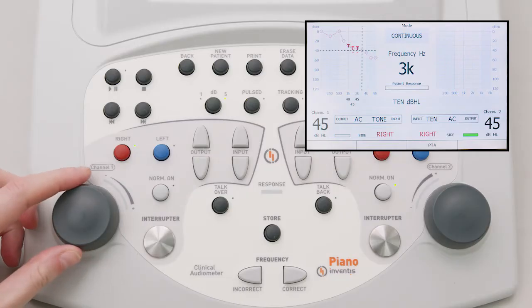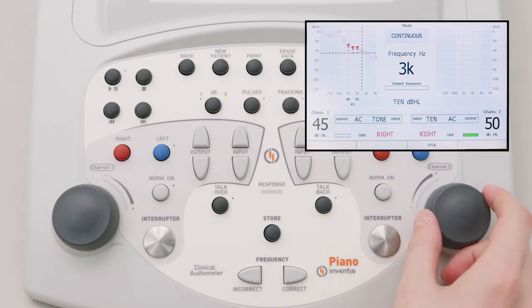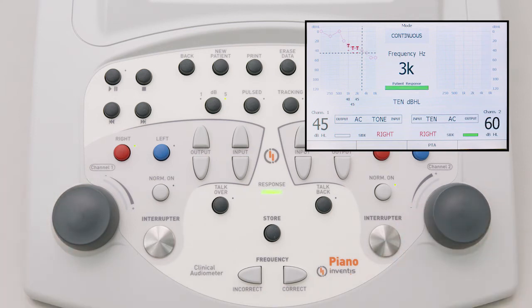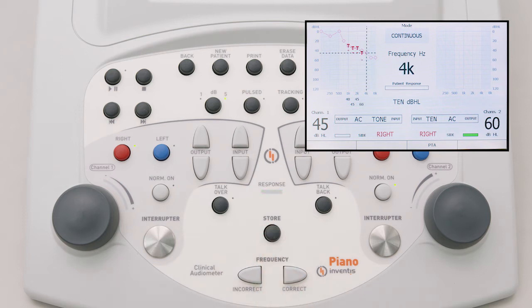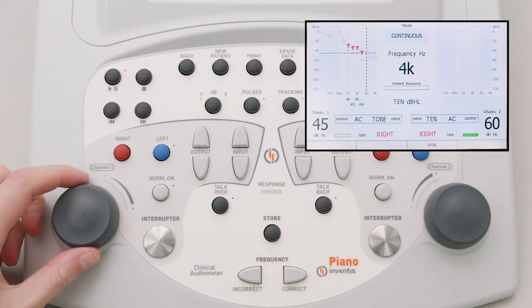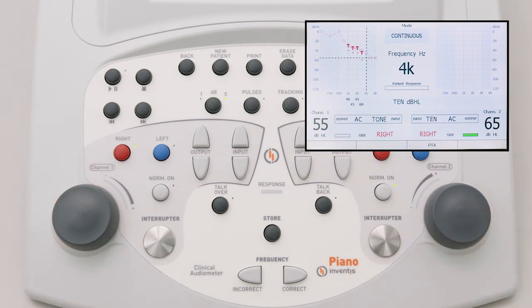While executing the exam, the background noise must be added to each frequency of the pure tone signal at least 10 decibels above the hearing threshold. Both the tone and the background noise are played in the same ear of the patient. If the resulting masked threshold is 10 decibels or more above that of both the threshold and the TEN noise, the cochlea is considered dead at that frequency.